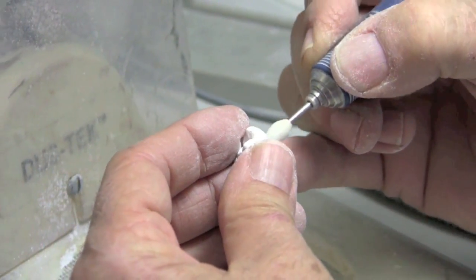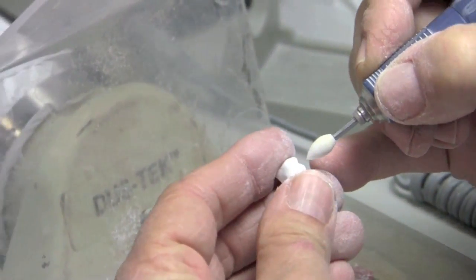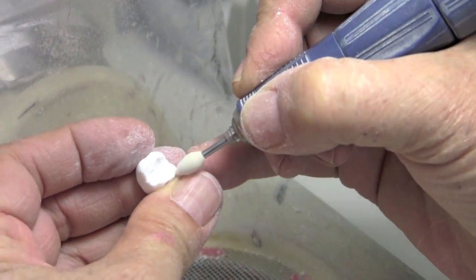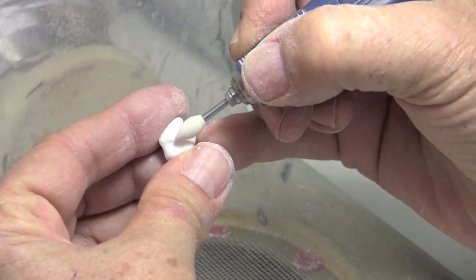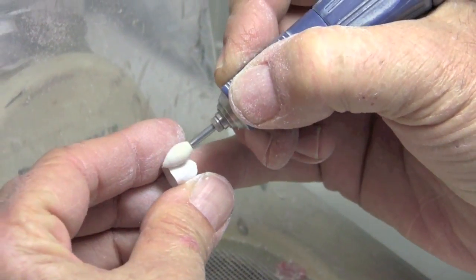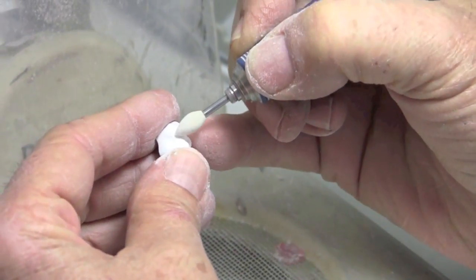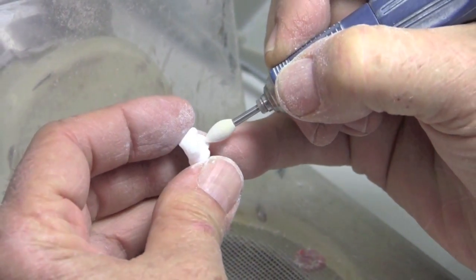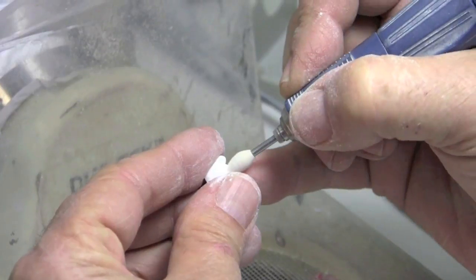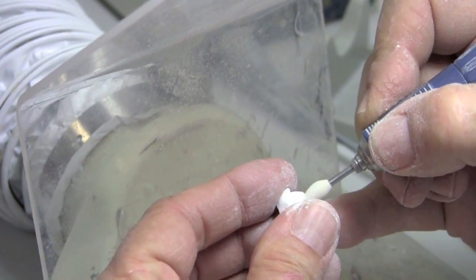If you try standard on zirconia and you really feel like your tool marks are too deep and too much, then by all means go back to high quality. And again, my goal here, and I'm looking at the facial, is to eliminate facets on the surface that is almost impossible to do. It's really difficult, mainly eliminating tool marks. Because remember also that when we sinter this, it's going to shrink by about 20% or a little more.